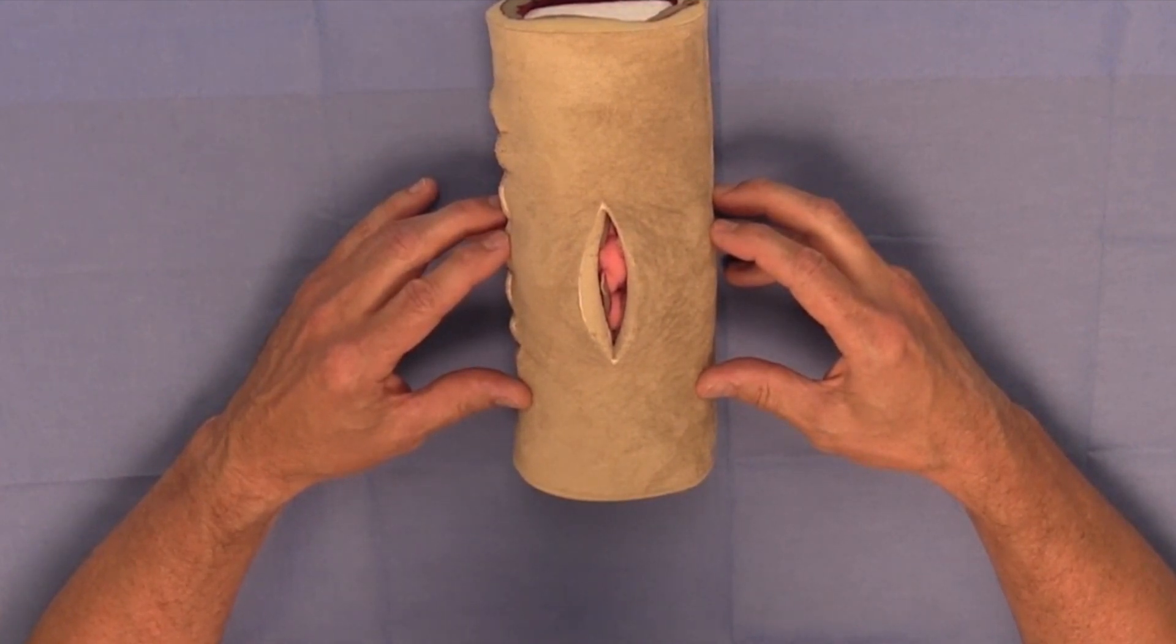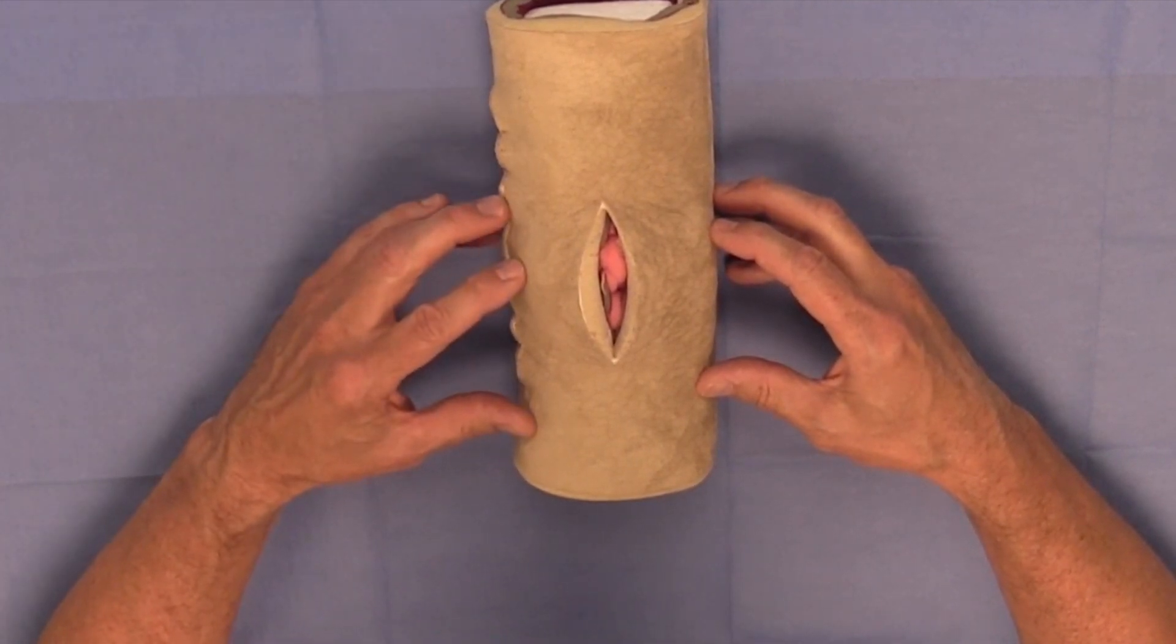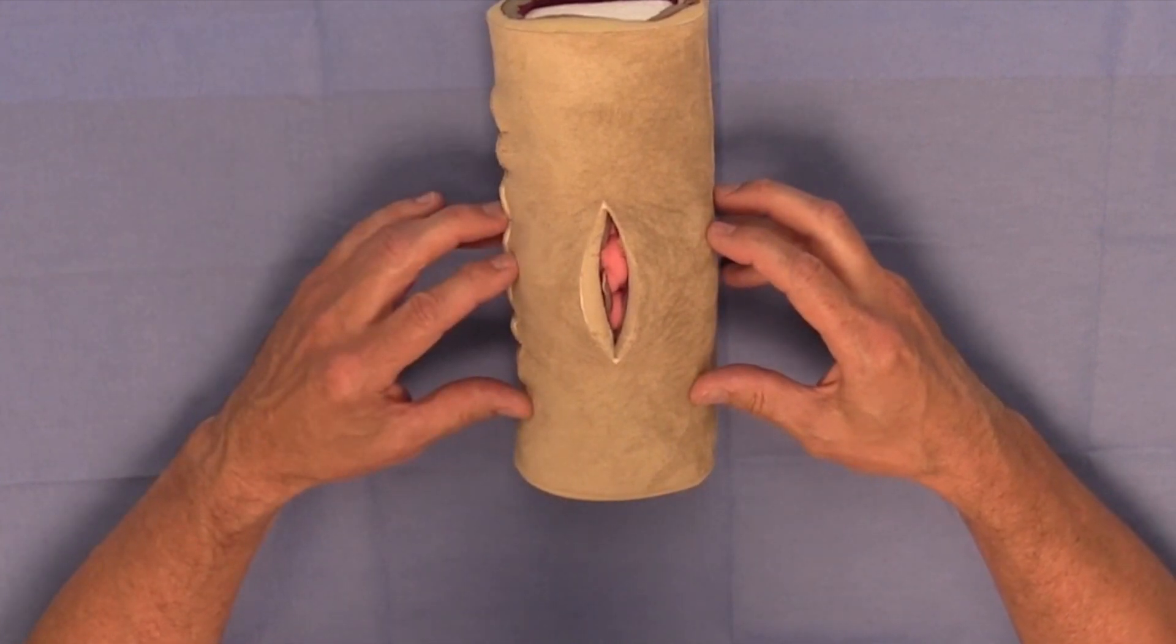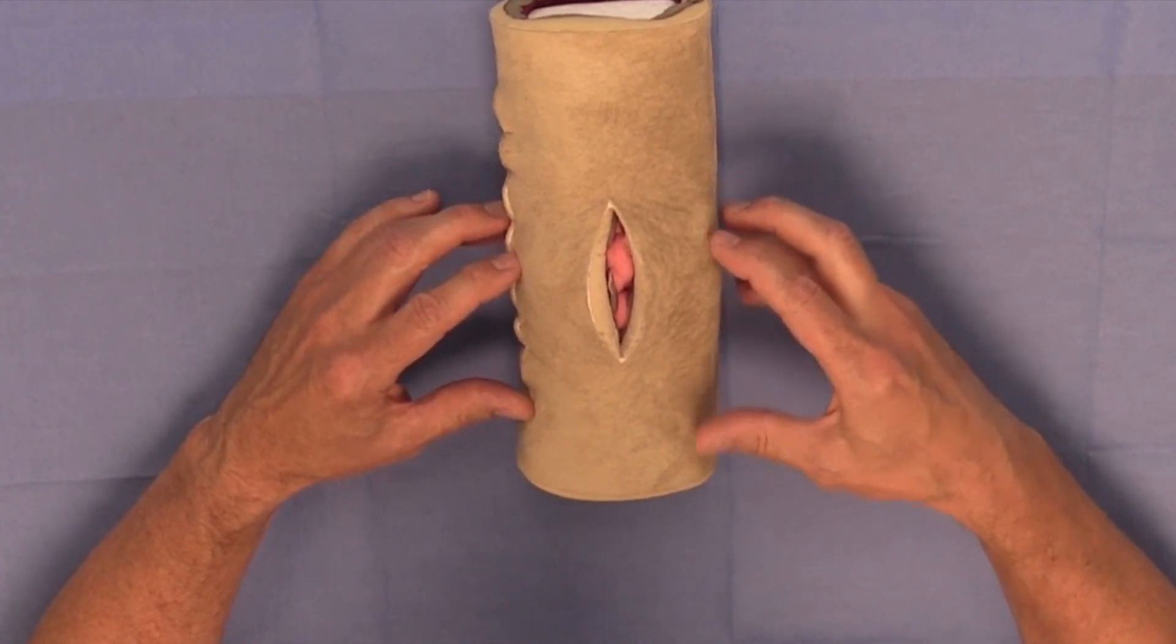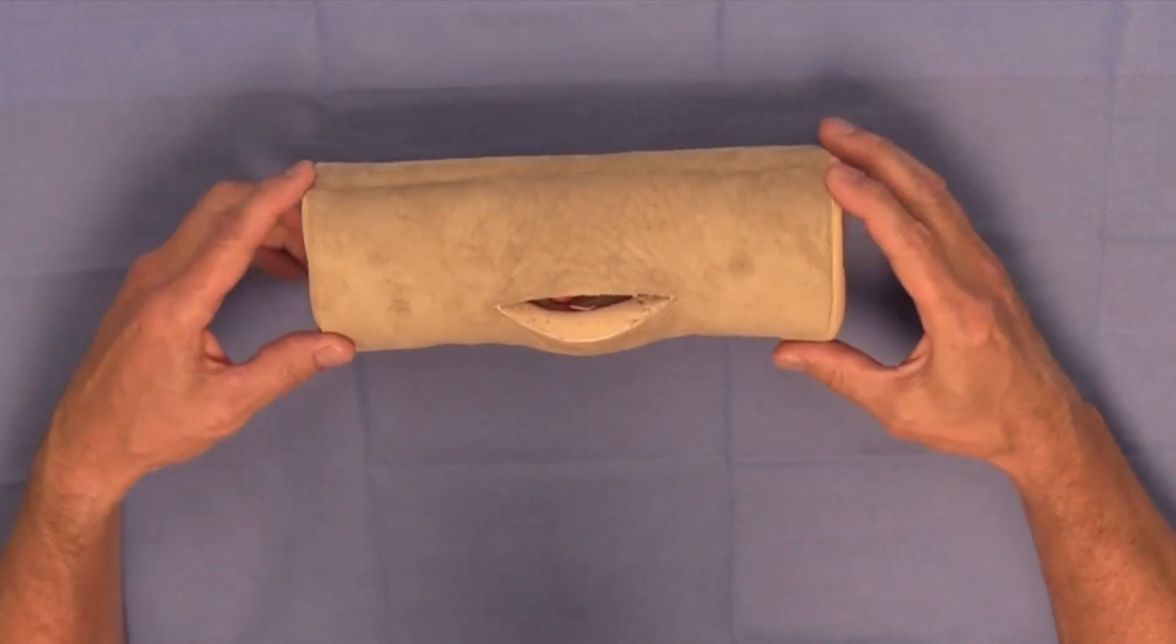And so there are no rules as far as how the DAISY should or could be oriented on the practical examination, and therefore you probably should become familiar with practicing techniques with the DAISY either in this direction or 90 degrees in this direction.